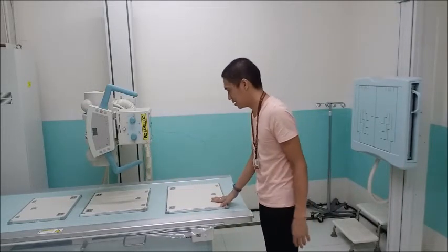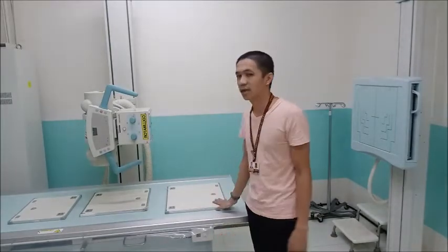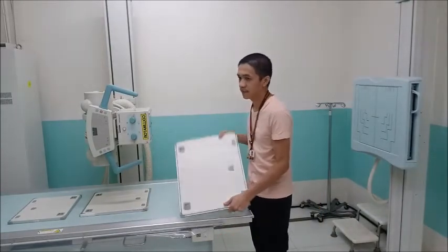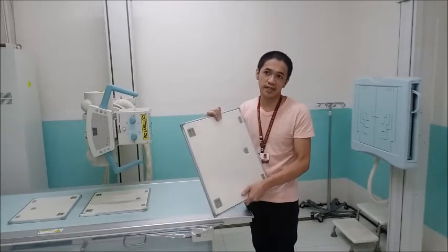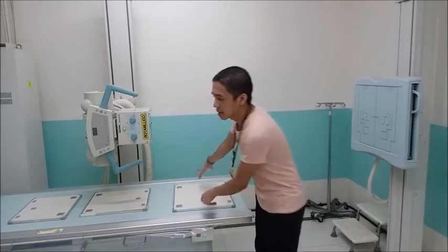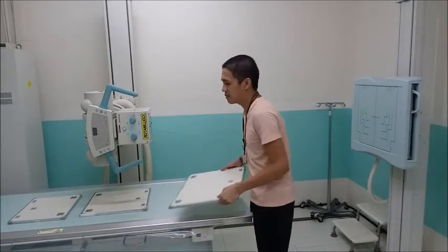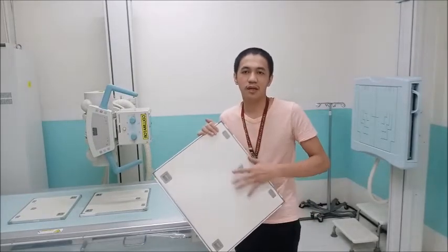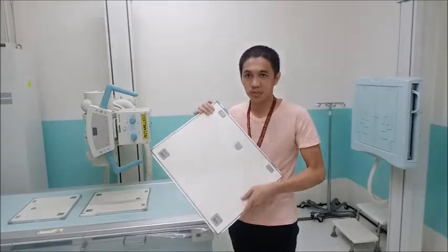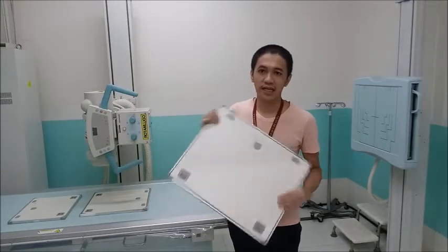So, for the IR that you have to prepare, since this facility is still dealing with conventional radiography, we still have the IR, the cassette. The image receptor is still the cassette, in which there is an X-ray film that is sensitive to light. So if you will be assigned to hospitals or facilities with computed radiography, they call the image receptor the imaging plate. It's not the cassette but rather the imaging plate. The usual size of the imaging plate is 14 by 17. So one size fits all.